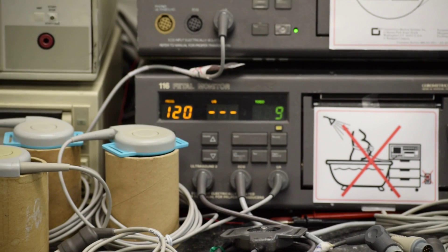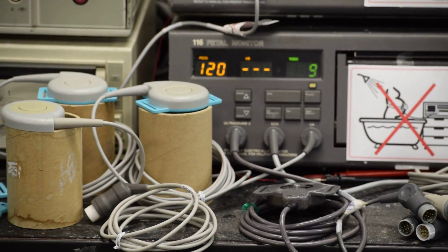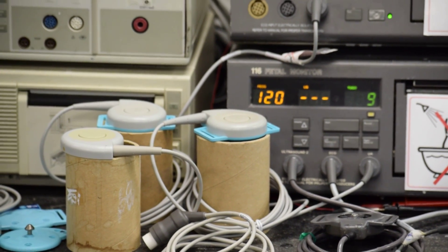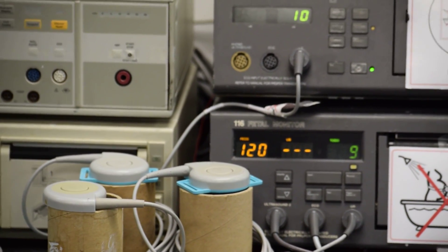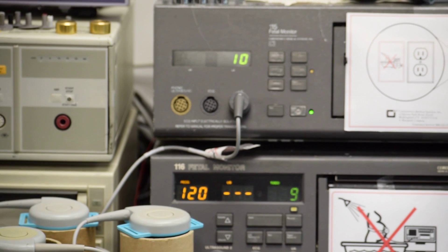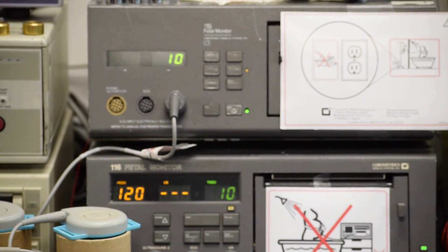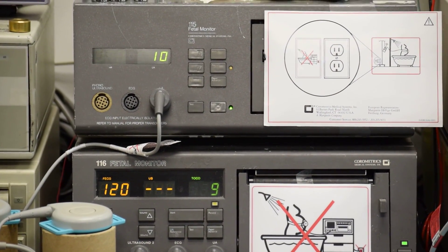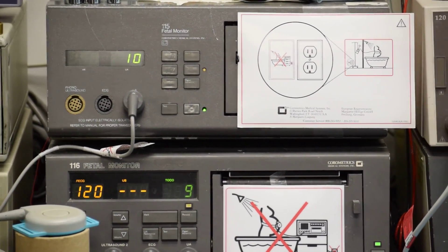So in order to keep them perfectly to Corometrics factory specifications, it is recommended to use original connectors that will not damage the fetal monitor and give very reliable performance for a long period of time. At Avron Bionics, we repair these transducers to exact OEM specifications, giving a guarantee.